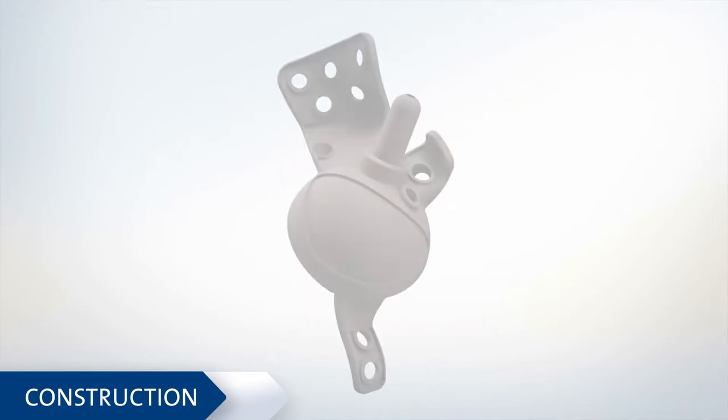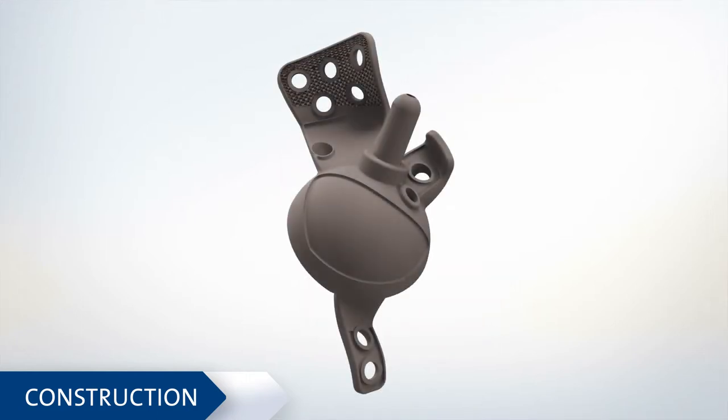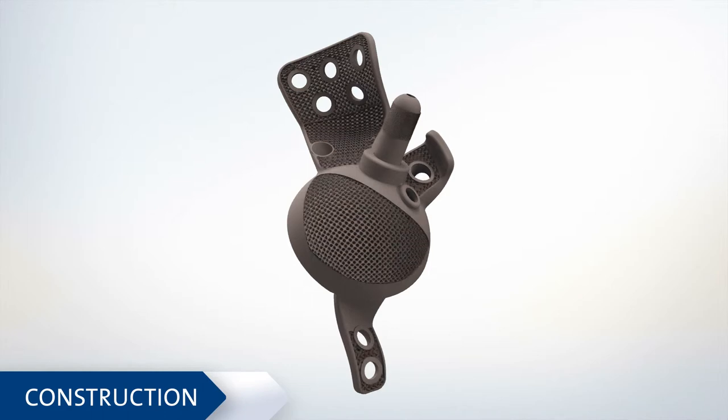For optimum secondary stability, all bone contact surfaces have a 3D macro structure.